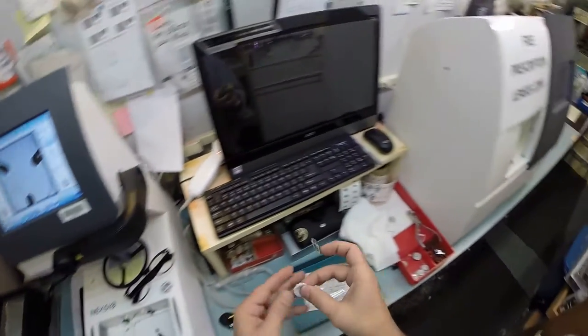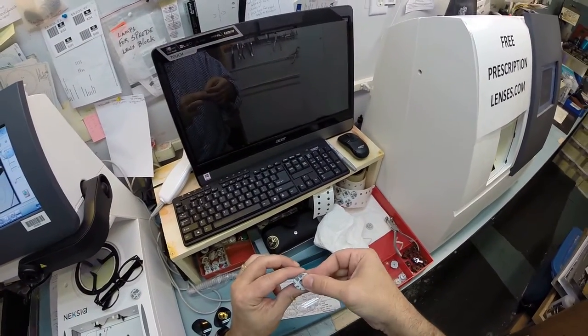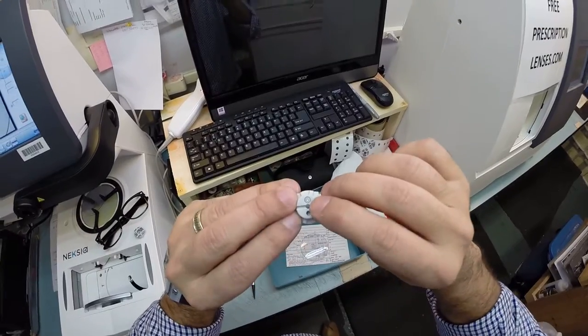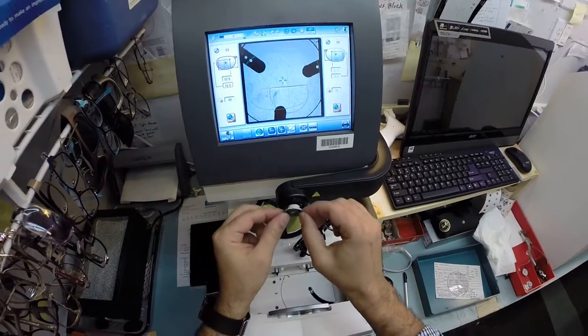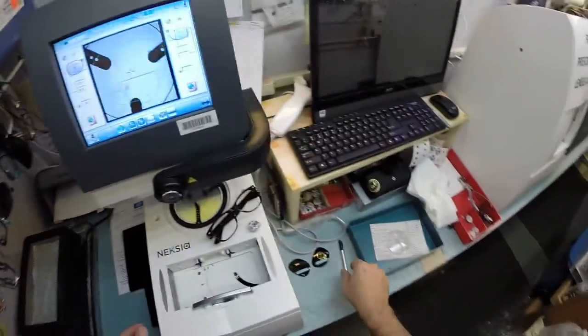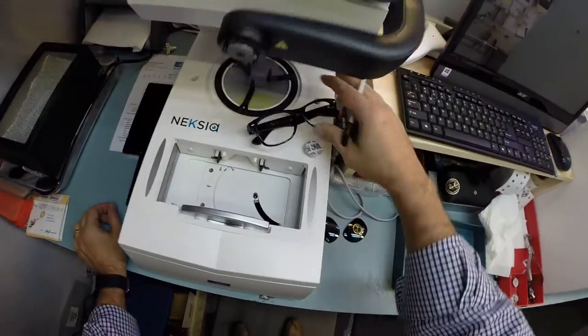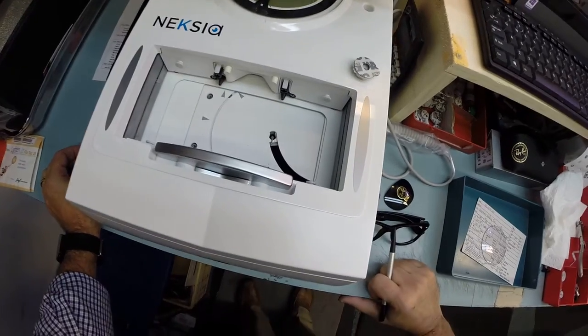I'm going to stick it on the first one. Now this little silver button on the back is a magnet. That magnet is going to hold it in place there in the arm. I hit this button. The arm comes down and places the block onto the lens.